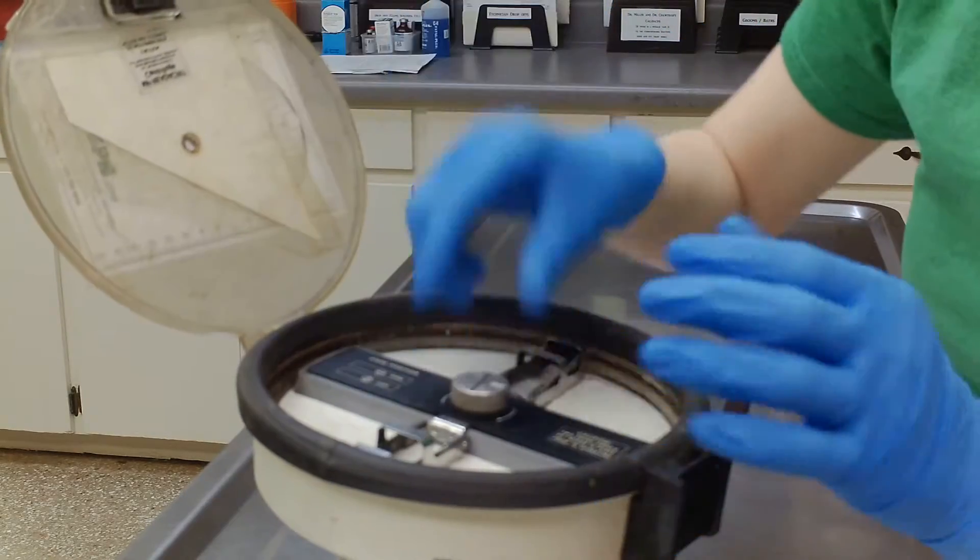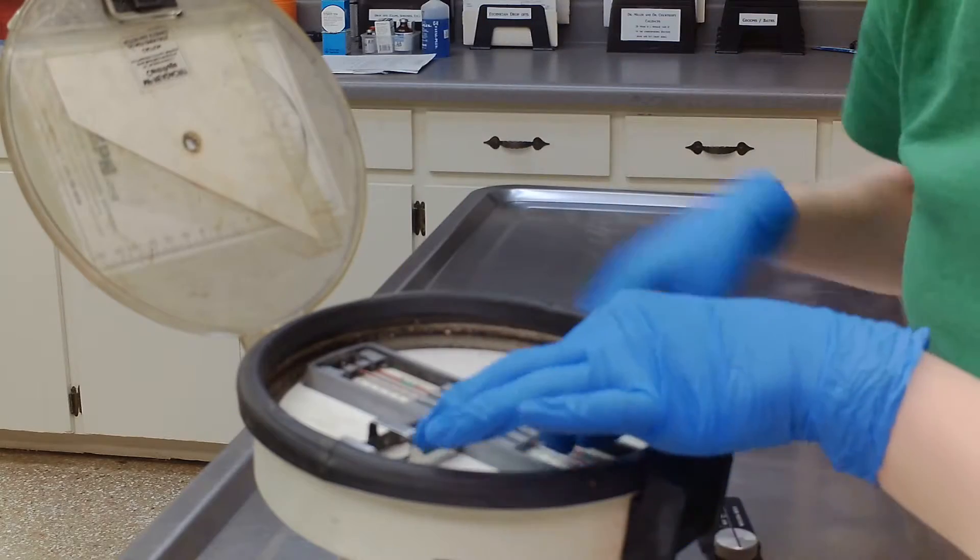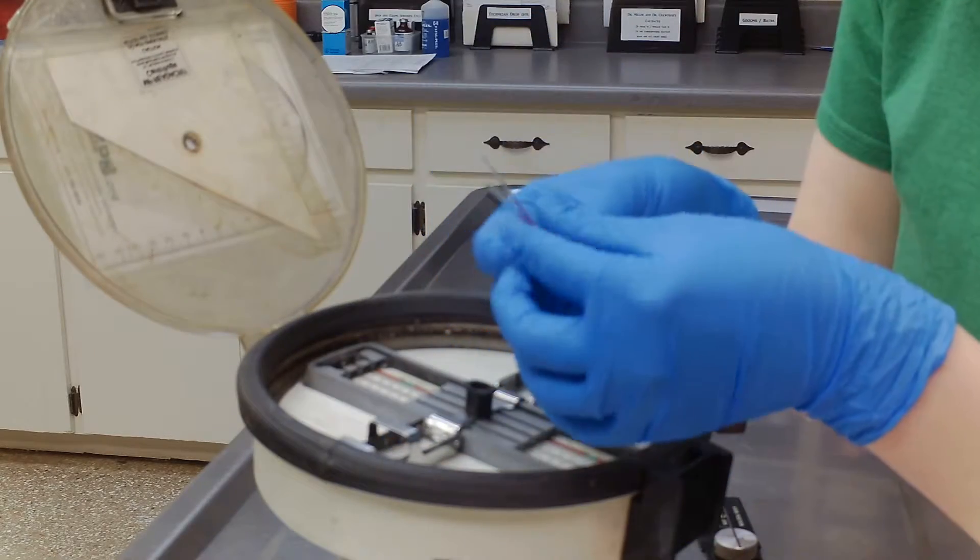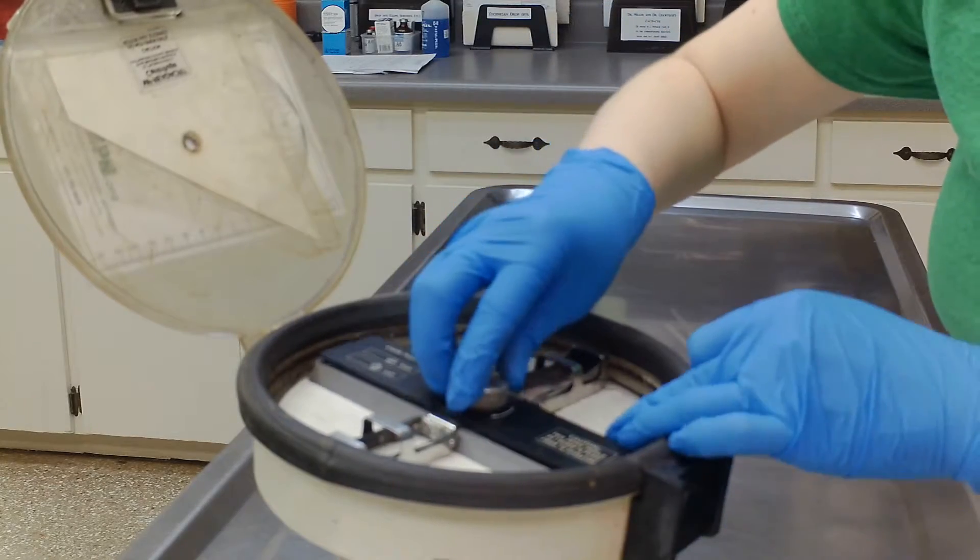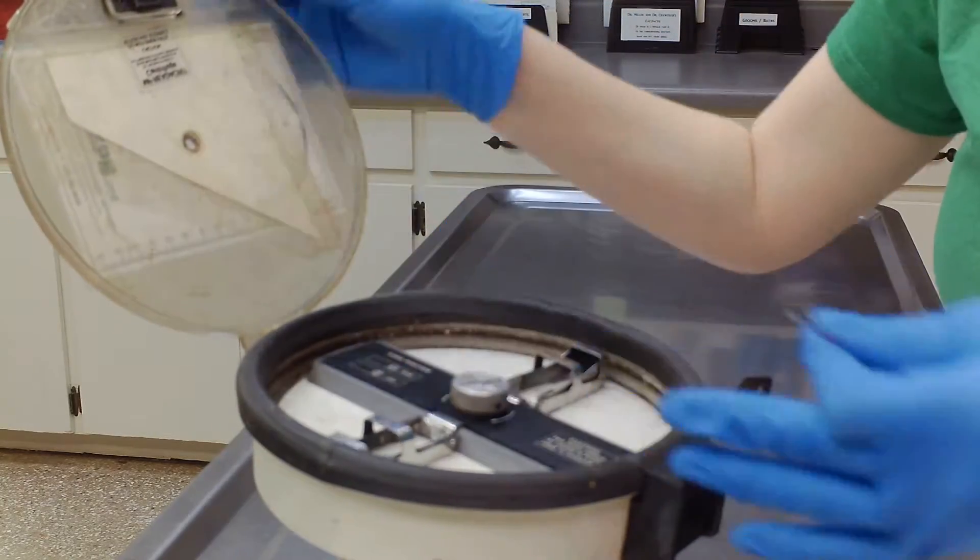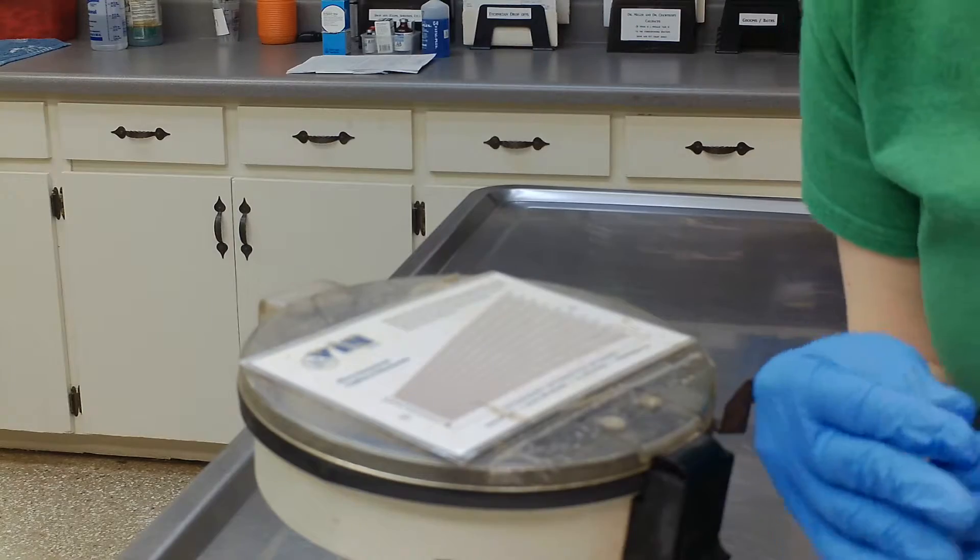But like I said, this one does not work. The motor is shot. So I'm going to put it in our big hematocrit tube or blood tube centrifuge. I'm going to show you how we do that.